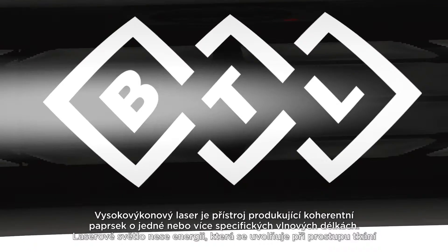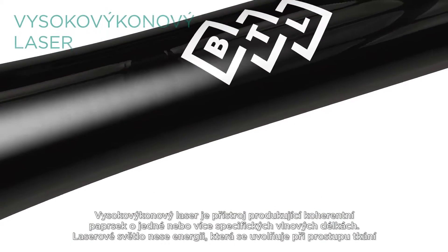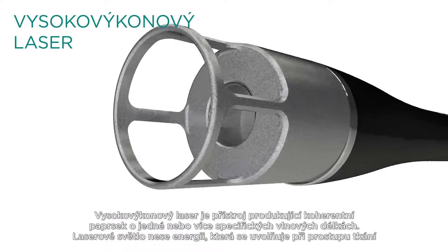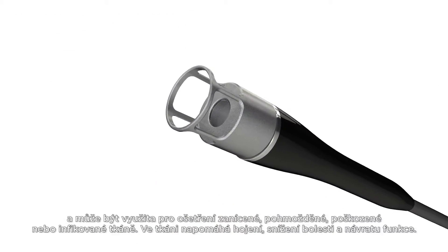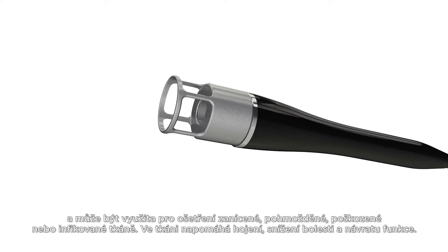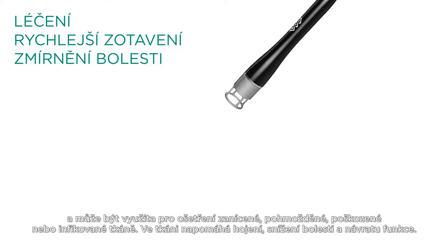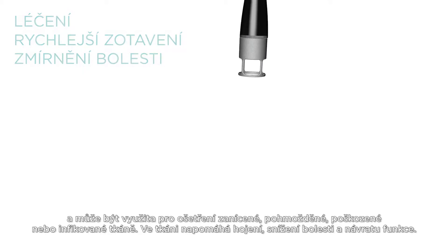High-intensity laser is a device which produces coherent light of one or more specific wavelengths. A laser beam carries energy which spreads through the tissue and can be used to treat inflamed, torn, or otherwise damaged or infected tissue, where it speeds up healing, recovery and reduces pain.